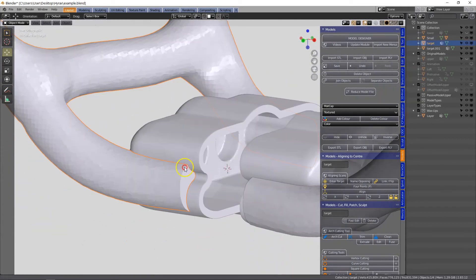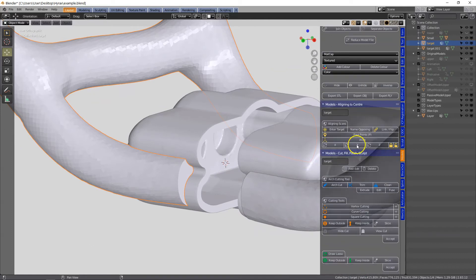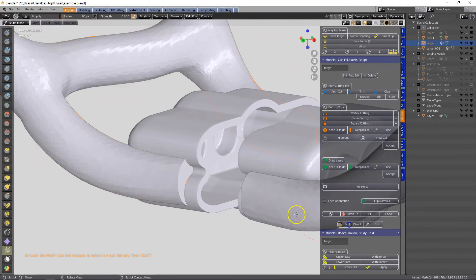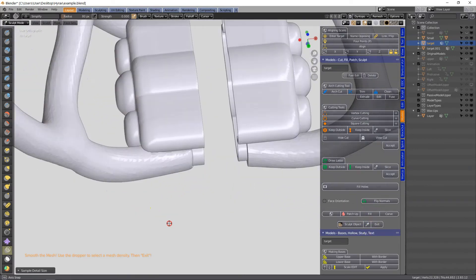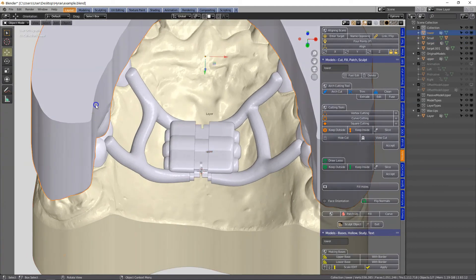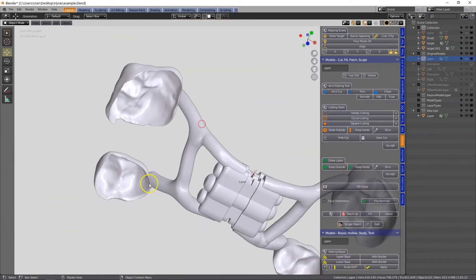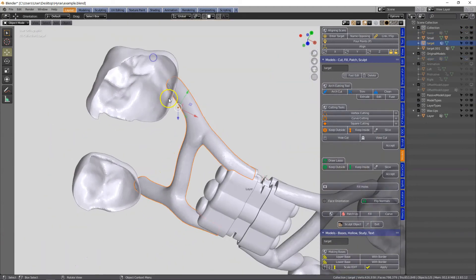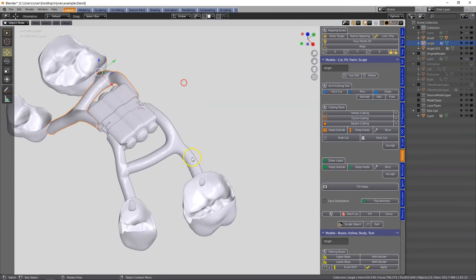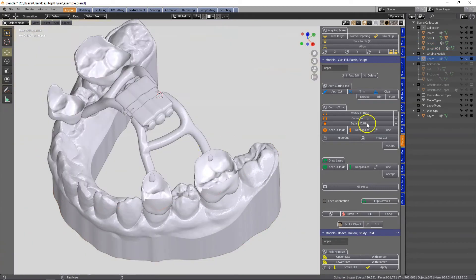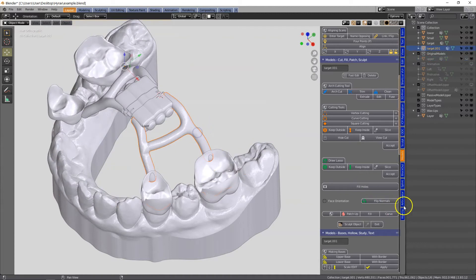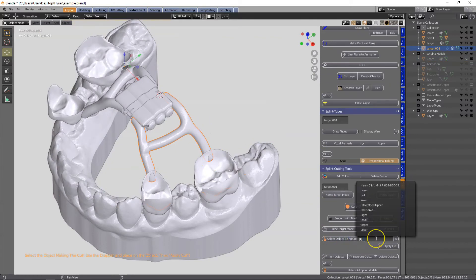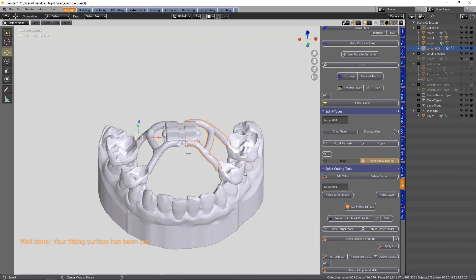Next if you wanted to sculpt it you can do that but for this video I'm going to leave that section out. So following that we need to address the inside. Now I have deleted my target model which we should have used to cut away the section, but I'm going to be using the actual model instead. So that becomes the object being cut, I'm going to be looking for my upper model and then cutting it.